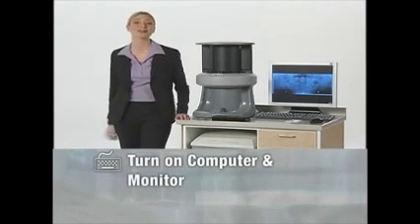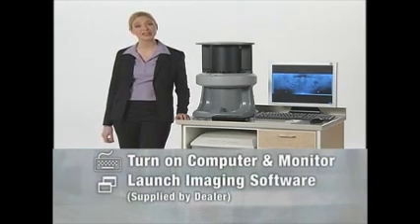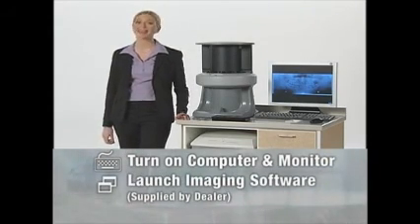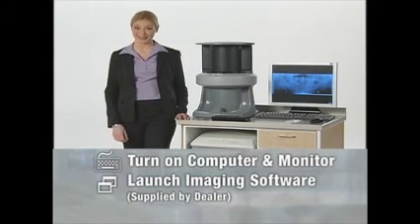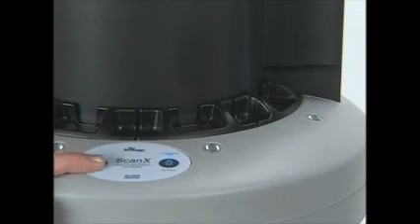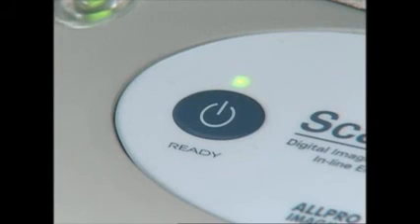Make sure your computer and monitor are turned on and your digital imaging software is open. Then make sure the ScanX is turned on with the membrane switch on the front of the scanner. The control panel has two membrane switches. The ready switch on the left turns the machine on and off. A green LED on this switch means the ScanX is ready to use.